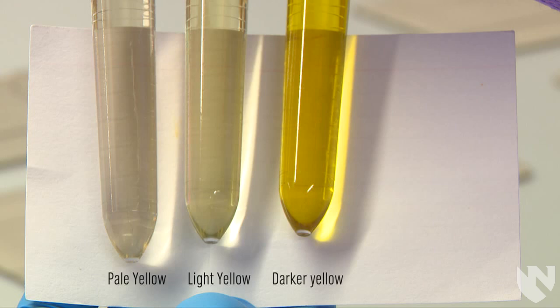However, we would report all of these urines as just yellow. This is the most common color we see in the laboratory.